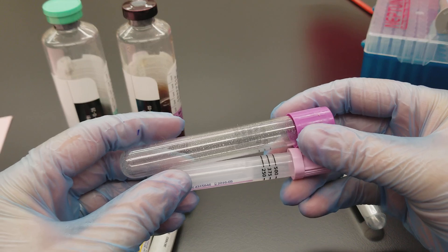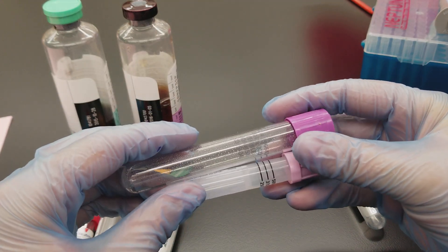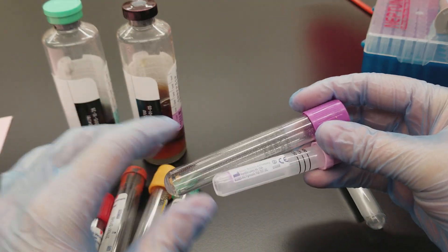Please make sure that you remember that a critically high potassium and a critically low calcium would indicate EDTA contamination, and you should not report any of those results. You don't need to tell any other area of the lab about that unless there was another gold top drawn somewhere.